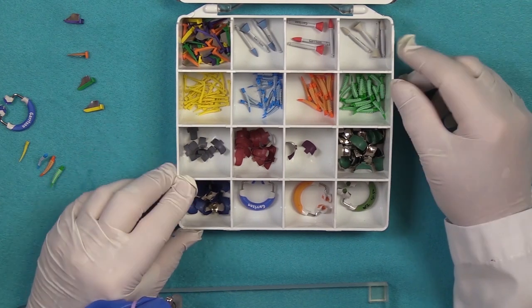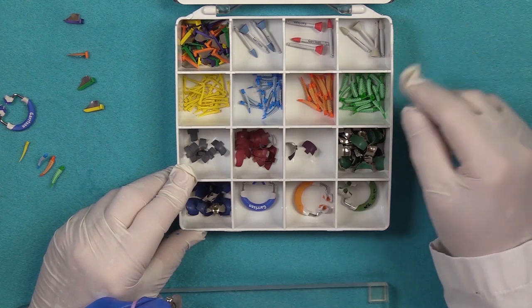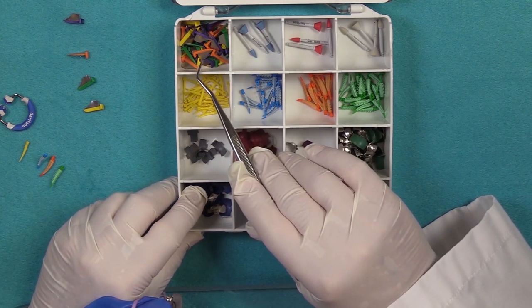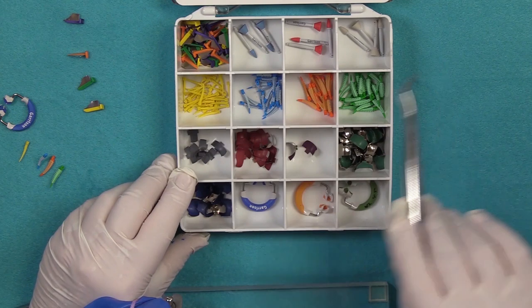We're going to talk about how to preserve the interproximal dental dam when you're making your preparation. For that purpose, we have what we call fender wedges. We'll go over those in just a few moments. I'm just going to give you an overview of the kit.